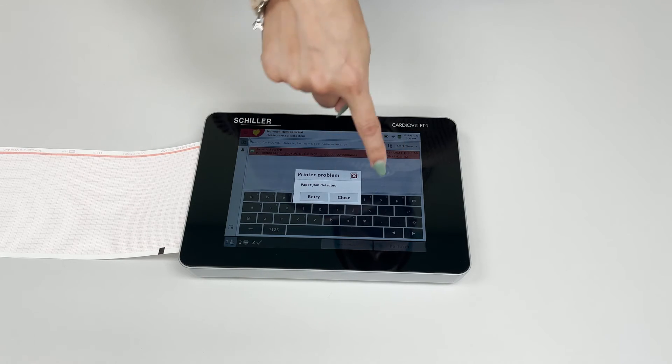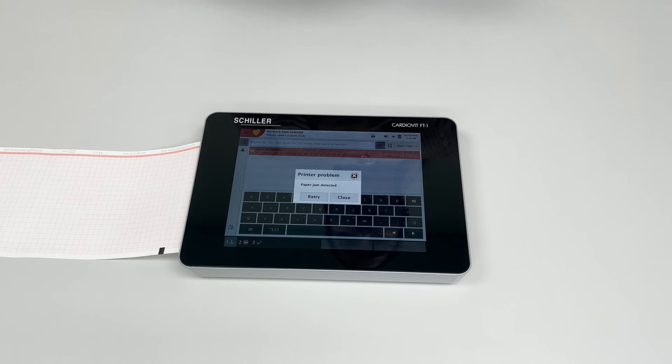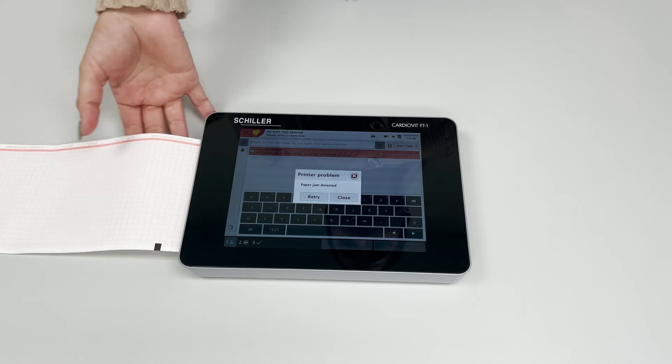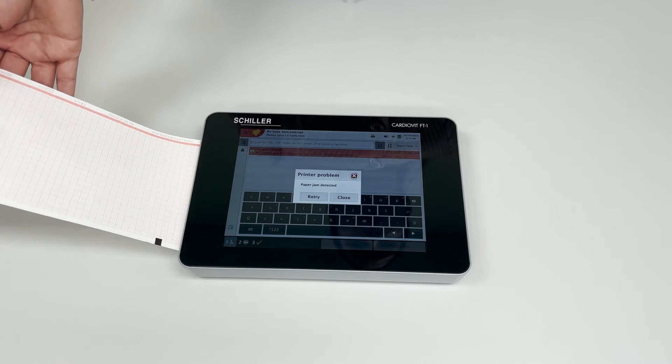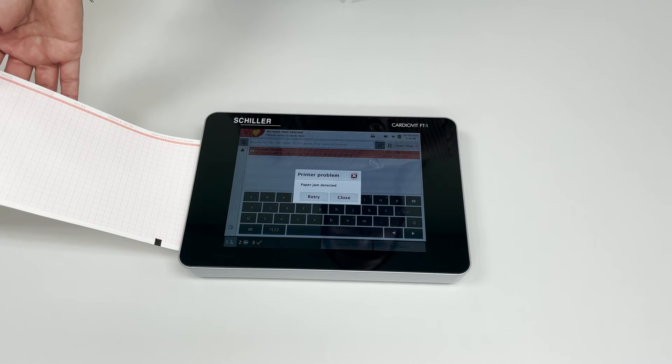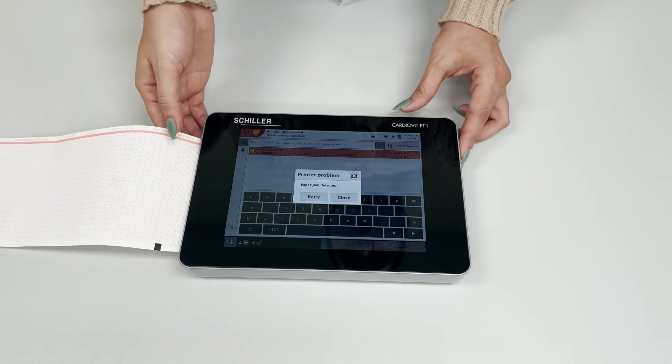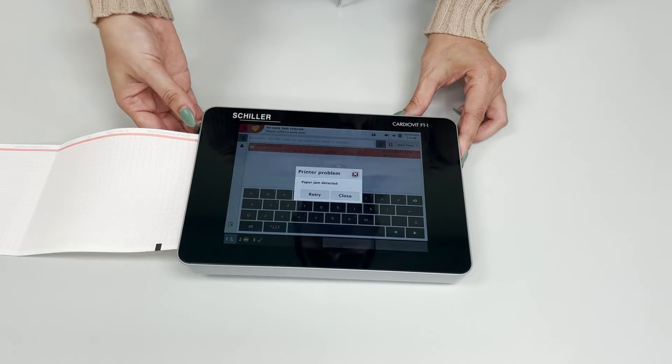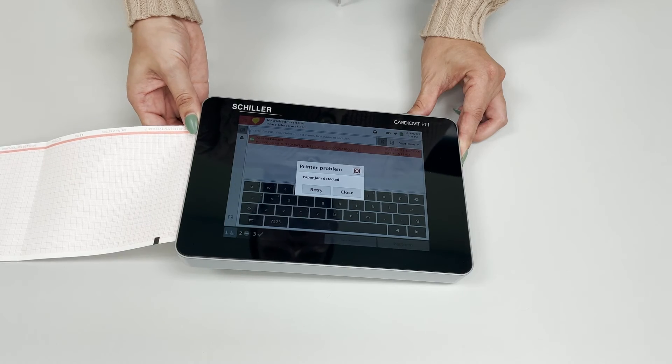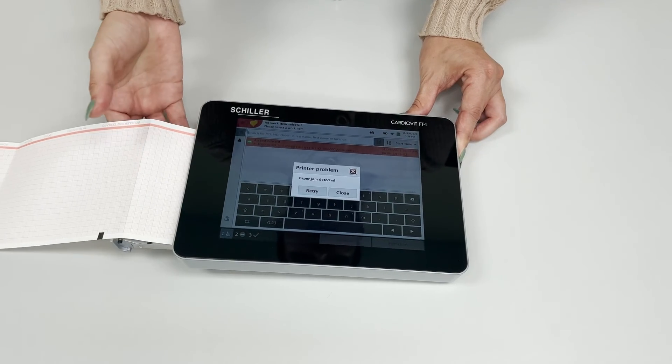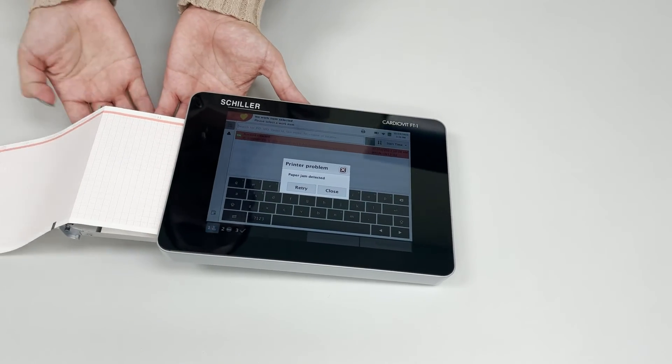In this case, the reason is your paper is inserted incorrectly. To place the paper correctly, you must always have that black registration mark at the top left corner and not anywhere else.